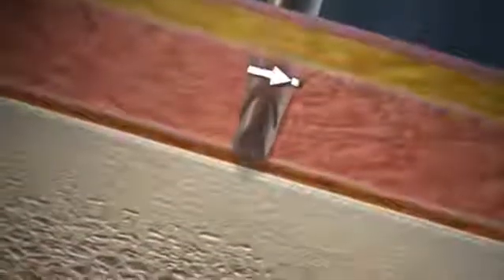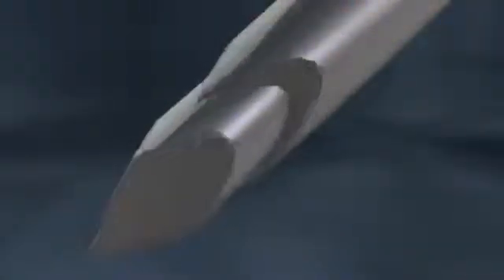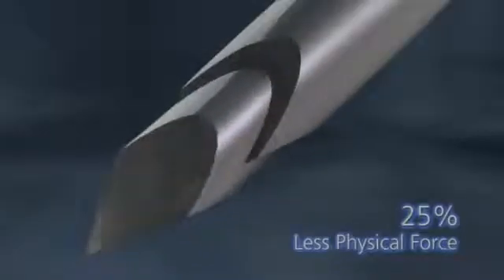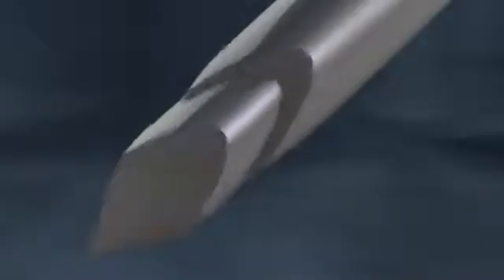The unique design of the Trocar Tapered Stylet Point and the Triple Crown Cannula Tip creates an extremely sharp, ultra-effective cutting edge. The result is superior cortical penetration and medullary advancements that require 25% less physical force to perform the biopsy procedure.